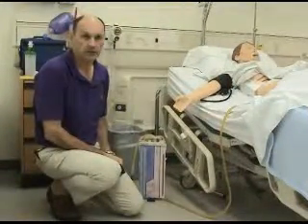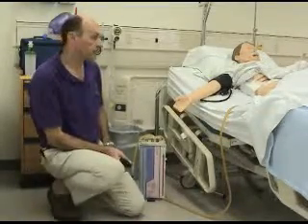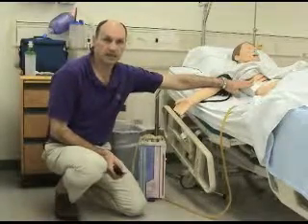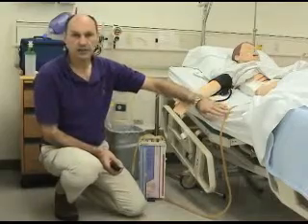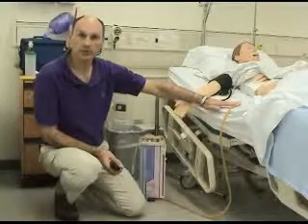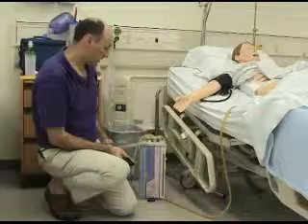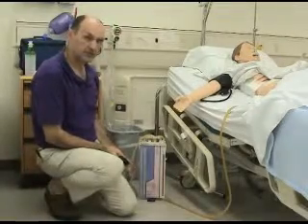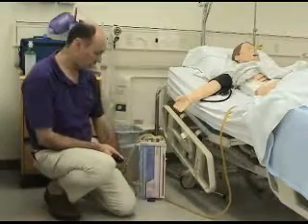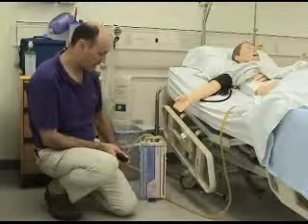So far, I've taken the latex glove and put it over the patient end of the chest tube. And then I've taken 2x2 or 4x4s and tape and applied it to the mannequin. Then I've taken the chest drainage system and attached it to the chest tube with a piece of tape, and I only put it on there very lightly to ensure that I have an air leak. And then I took the chest drainage system and attached it to the wall suction. I turned the suction on to a point where the bubbling in the suction control is very high.